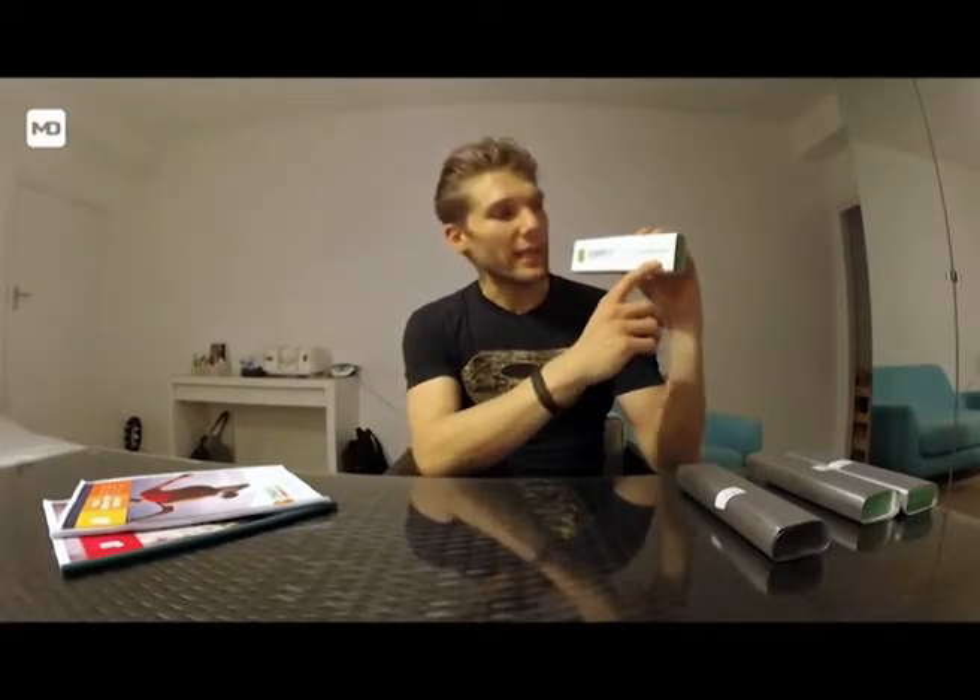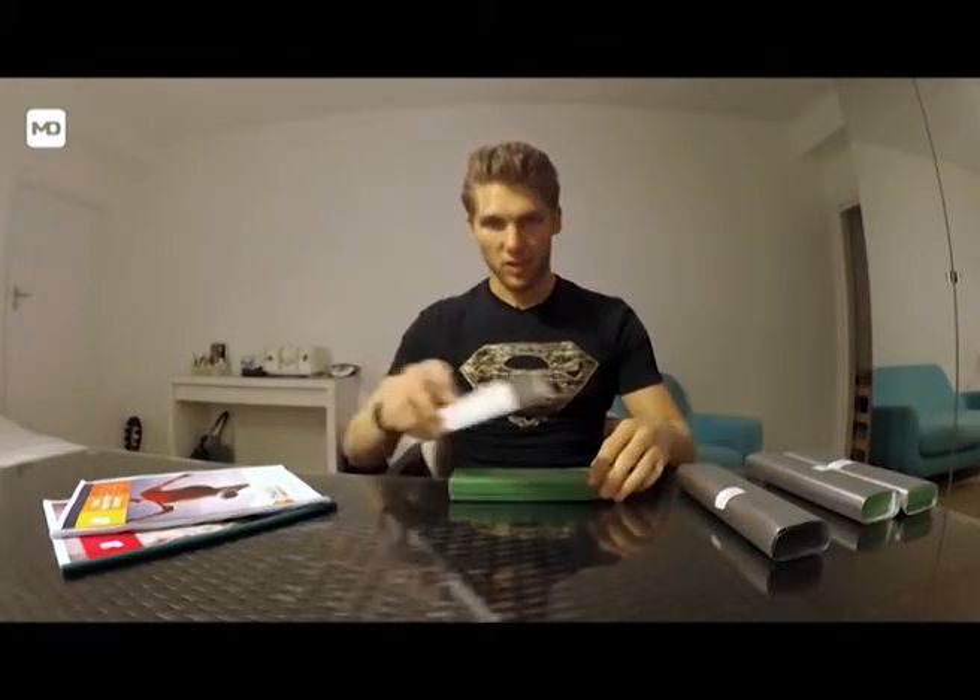This is a so-called DNA collection kit. This is a mouth swab you can do by yourself at home. Let's unbox this and have a look at what's inside — you swap it just to the side.